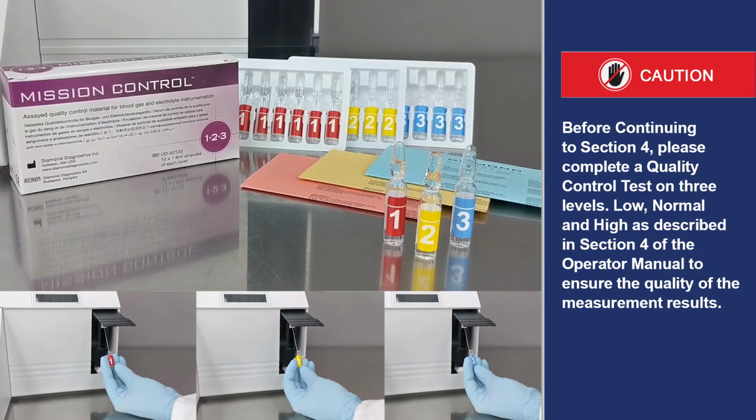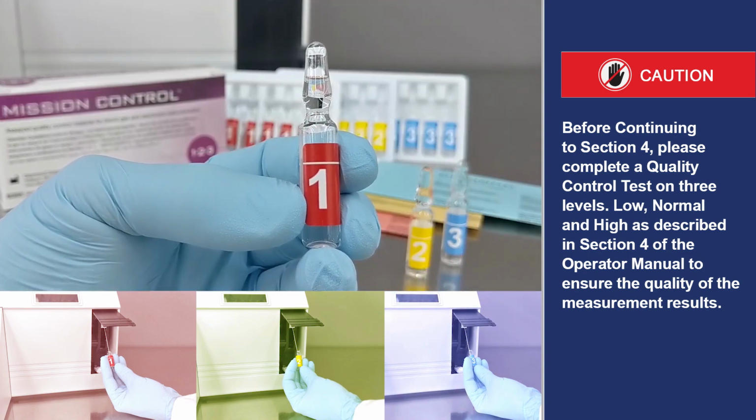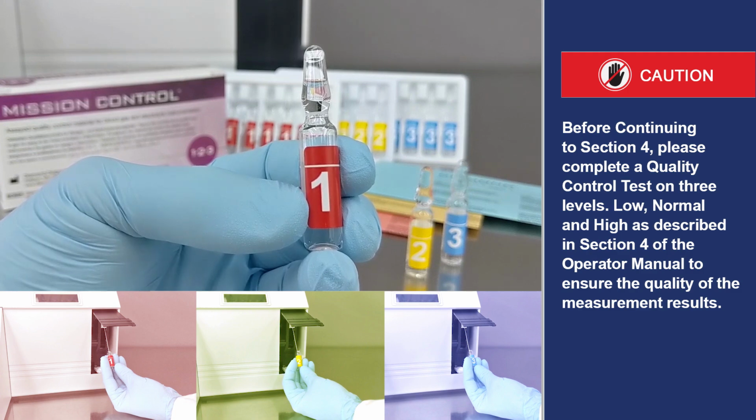Before continuing to Section 4, please complete a quality control test on 3 levels: low, normal, and high, as described in Section 4 of the operator manual to ensure the quality of the measurement results.